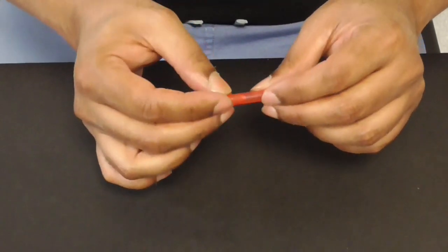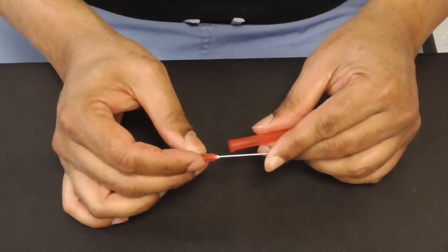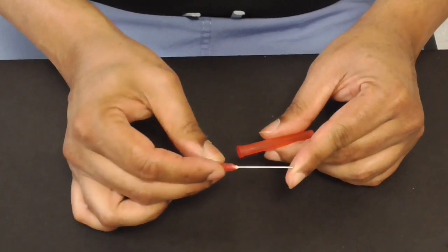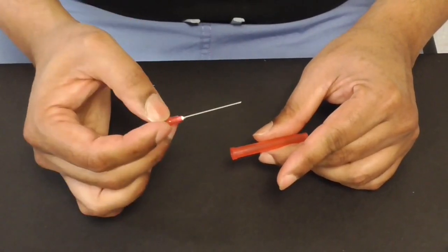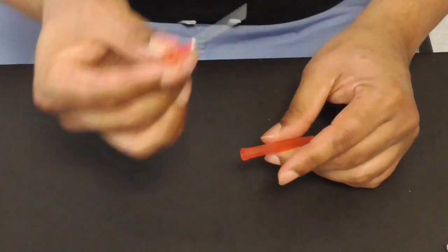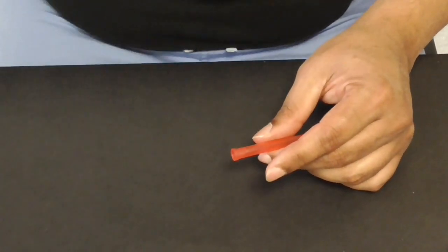It's terribly important to remember that if you have a needle without the safety locking thing on it to prevent needle stick don't resheathe it. This resheathing action one day you'll be tired and you're going to end up sticking your finger with it. This is a blunt one I'm demonstrating but if this was sharp gone into my finger I would have a needle stick injury so never resheathe it take the needle and put it straight into the sharp bin.